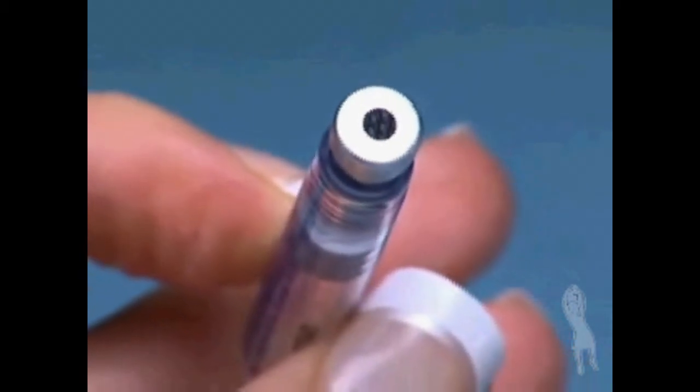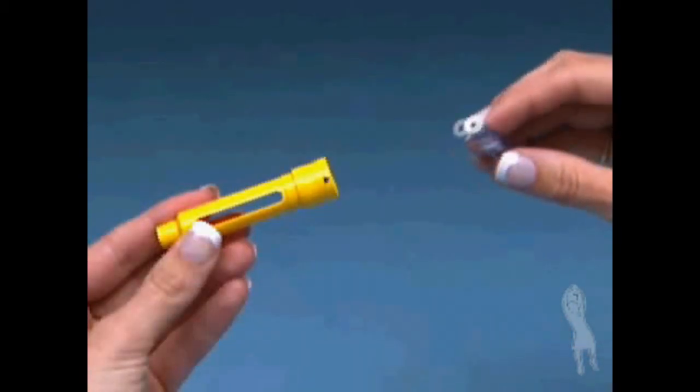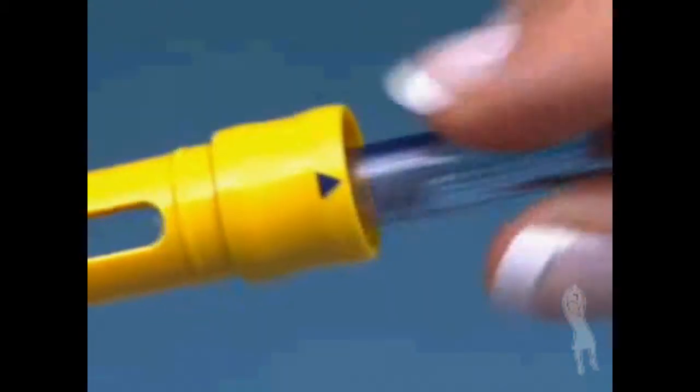Pick up the cartridge holder and place the cartridge inside by inserting the metal rimmed cap end first.